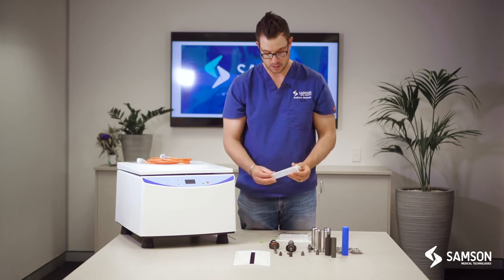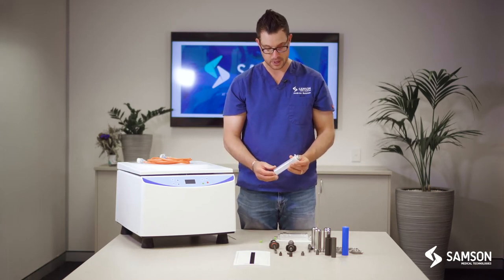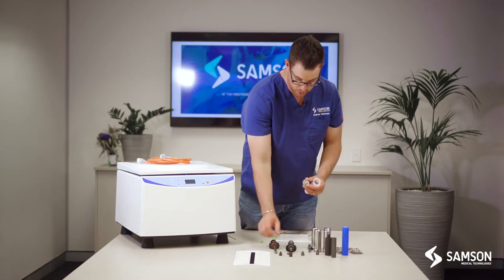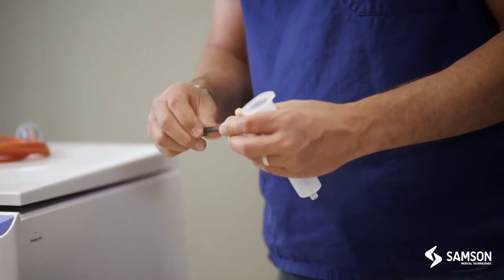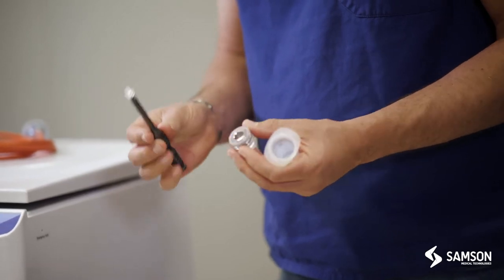To construct our TP101 handpiece or syringe, we would take our hex screwdriver and remove the screw out of the back of the piston.